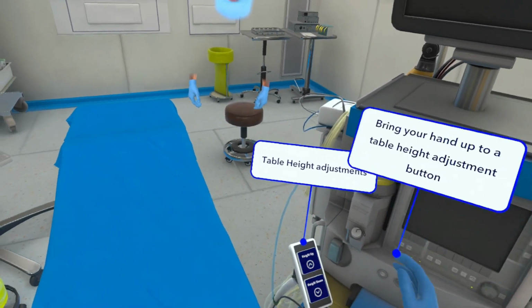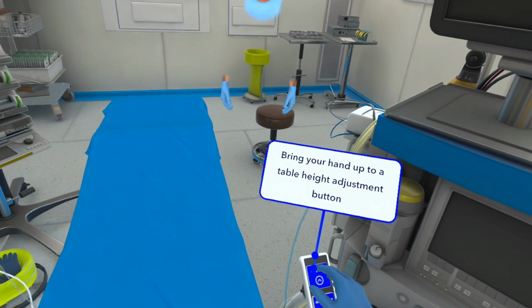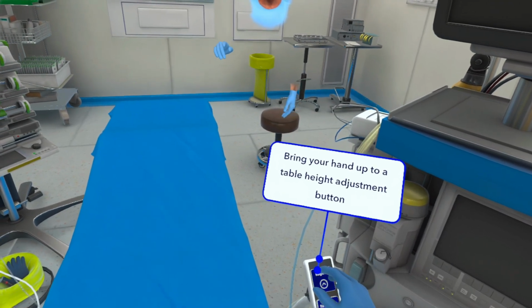Note the control buttons by the table. Touch the buttons to adjust the table's height according to your preference.